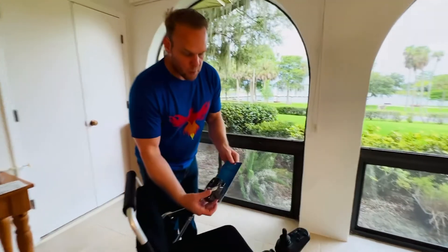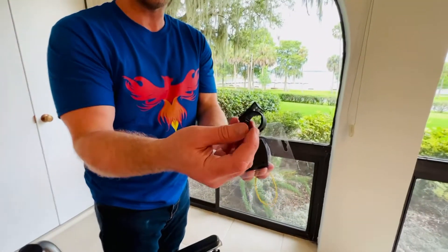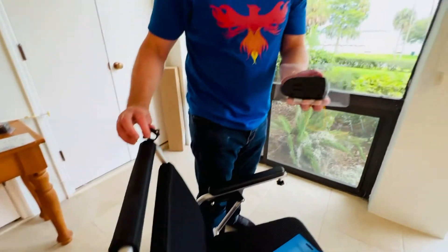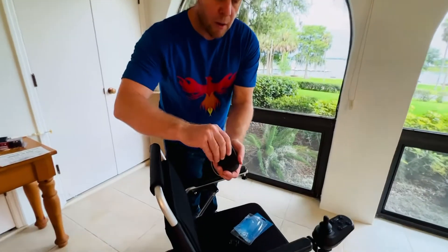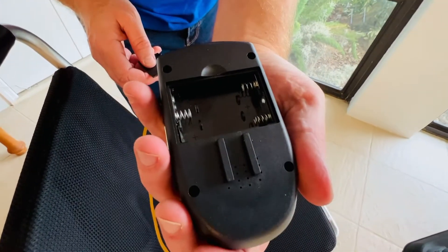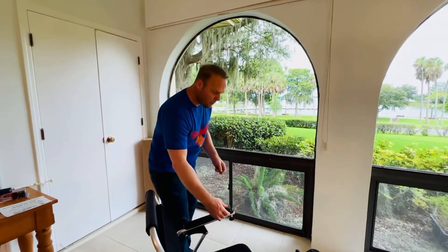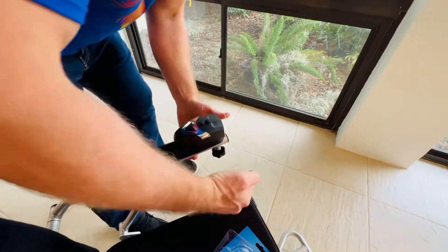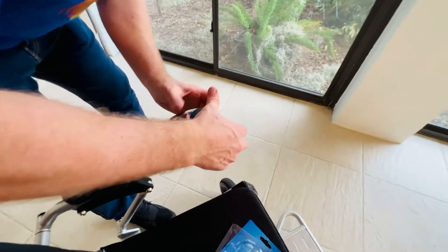With the light with the horn, we will take that out of the container. We can see that it has an attachment that will allow you to attach it really anywhere to the chair that you would like. But to me, the most efficient way to attach the light and horn to the chair — we see that it does require three batteries here. And we'll go ahead and close that off as I'm going to put the light on the chair, and I am going to secure the light with a rubber band to the chair.